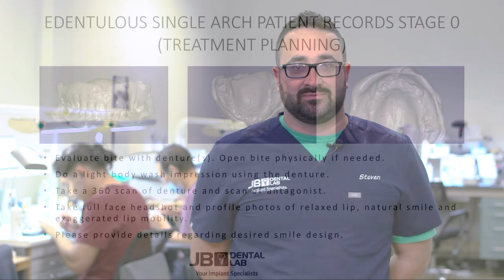Hi, I'm Steven with JB Dental Lab here in Tempe, Arizona, and we're a fully digital all-on-X dental lab. Today we're going to walk you through the steps for how you can implement this in your practice as well.